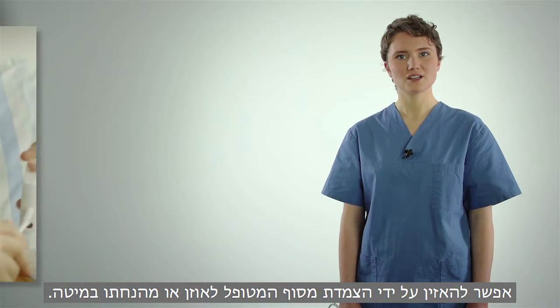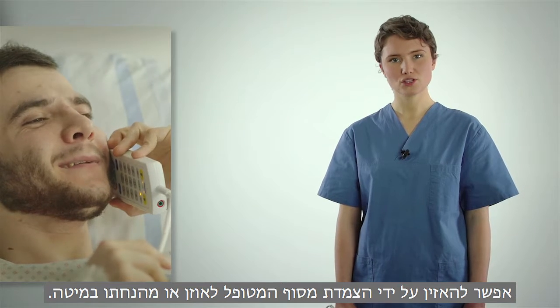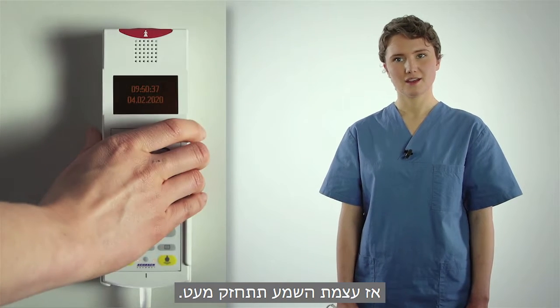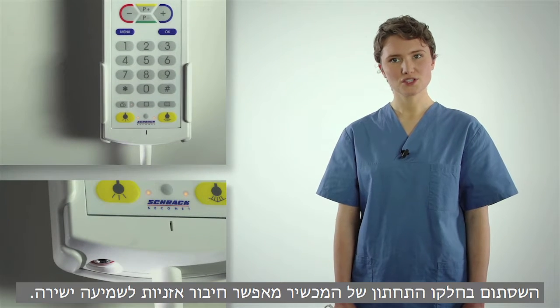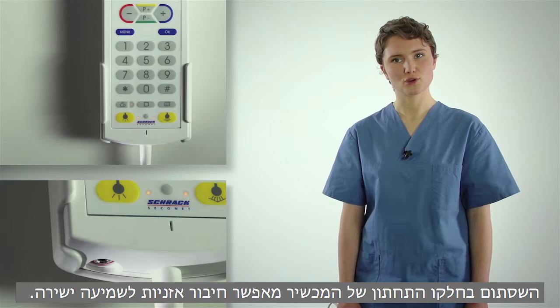You can listen by holding the patient terminal directly to your ear or by placing it in the cradle. In this case, the volume is increased. The socket on the bottom of the unit allows you to connect headphones for discrete listening.